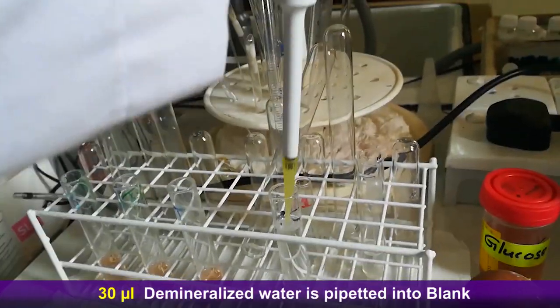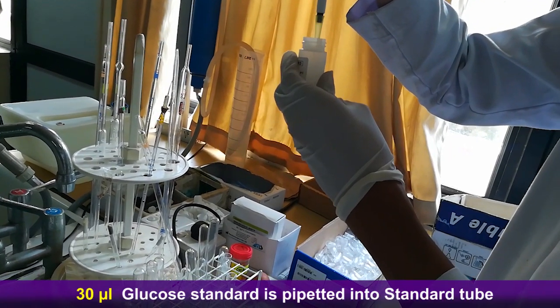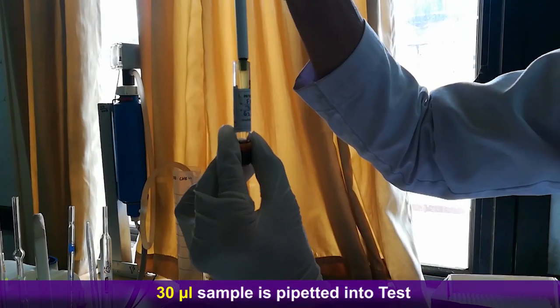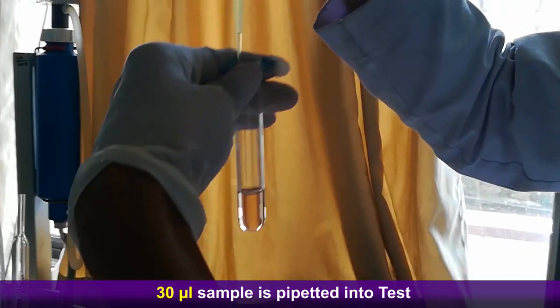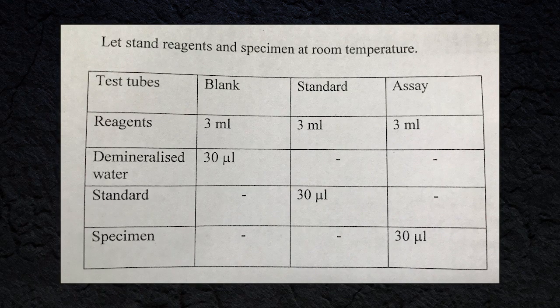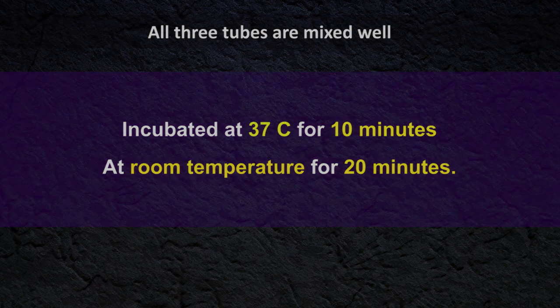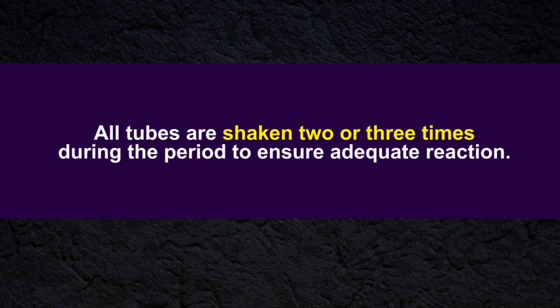30 microliters of demineralized water is pipetted into the blank tube, 30 microliters of glucose standard is pipetted into the standard tube, and 30 microliters of sample is pipetted into the test tube. All three tubes are mixed well and incubated at 37°C for 10 minutes, or at room temperature for 20 minutes. All tubes are shaken two or three times during the period to ensure adequate reaction.